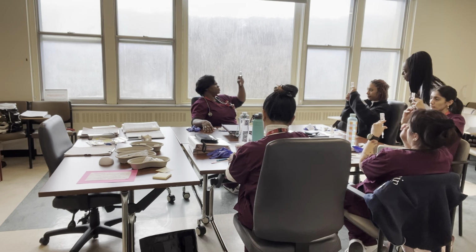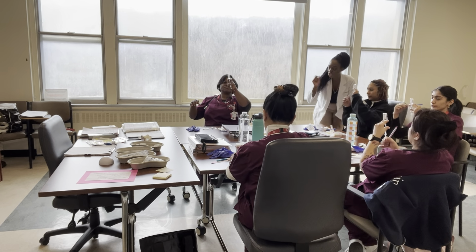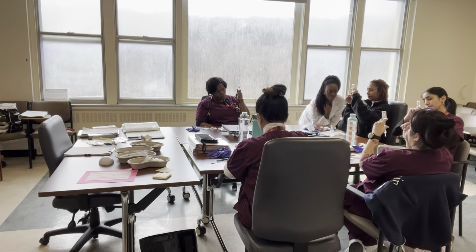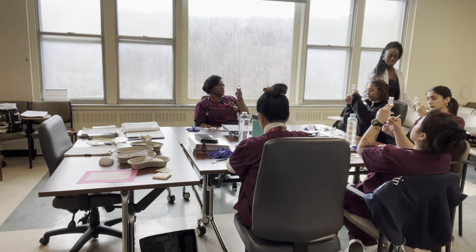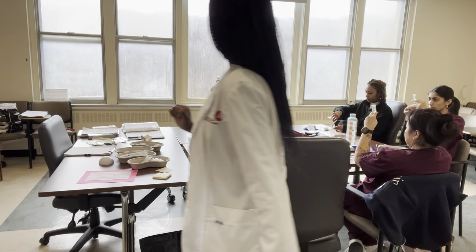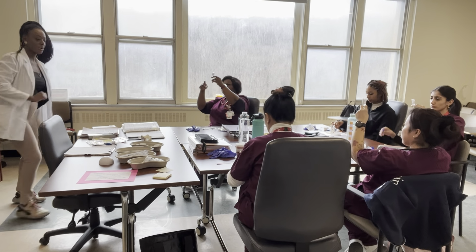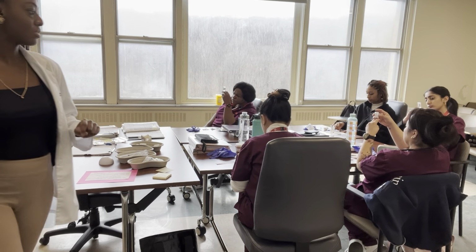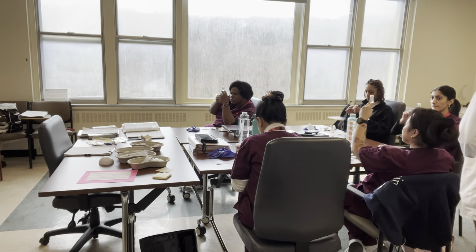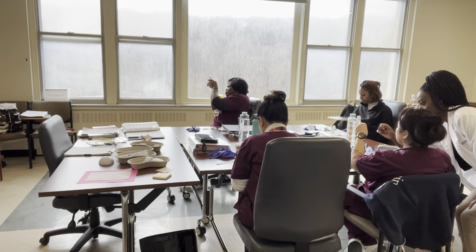So you have the right insulin. I don't see the date that it was opened. Okay, we'll use a Sharpie next time. Let's see when it expires. Good, it's the right concentration, and you have 7. Good job. Not ready? I see. When I hear the clicking, it means you're not ready. Is anybody stuck? Are you ready? Okay, I'll go to her first and I'll come to you. Good. So, right insulin. Sorry, turn this a little bit. Oh, good, the date that it was opened. Expiration. Excellent.